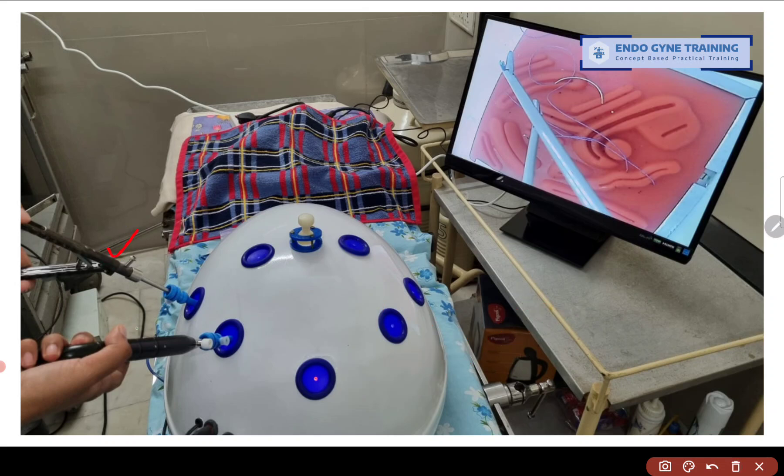For ipsilateral surgery I would like to have both of my hands on the same side of the patient's midline, and the opposite port I am going to use for assisting only. The first thing I look for in a pelvic trainer is that it cannot be a completely flat structure. Any device that is completely flat like a box is not a very good idea, because we require a device that simulates the normal patient's body as much as possible. It is only in a dome-shaped pelvic trainer that you can have the two main working ports at different levels relative to each other.